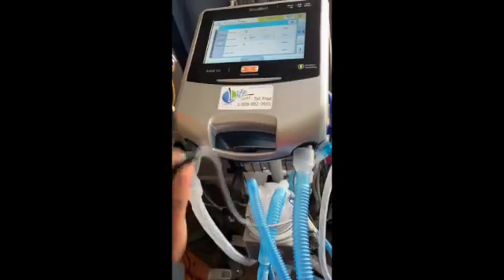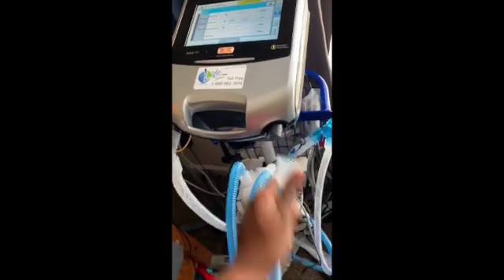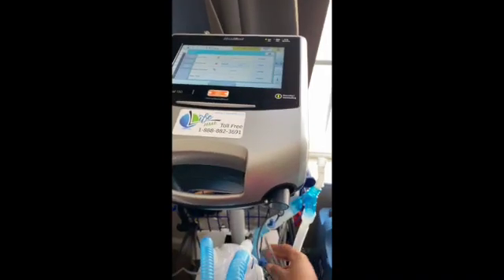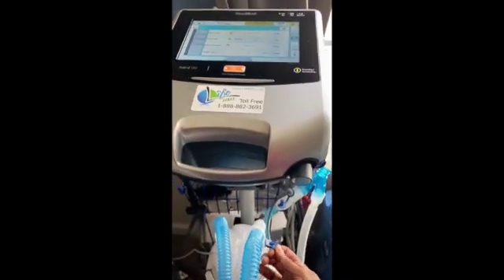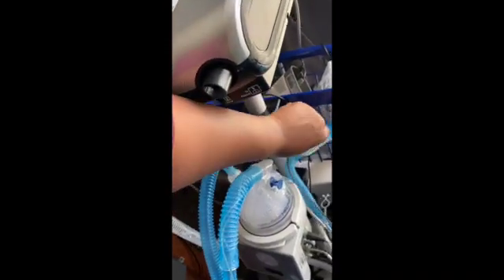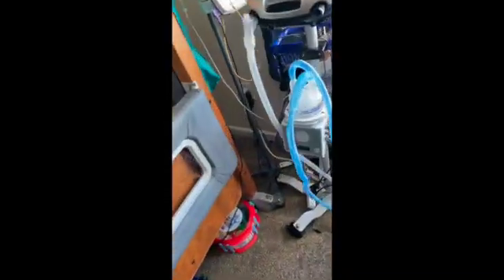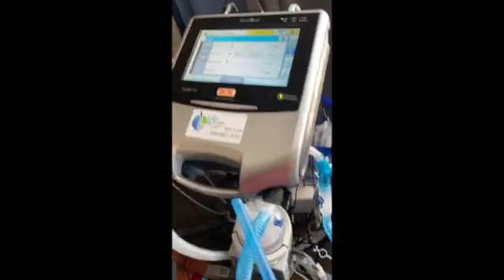What you want to do is make sure that everything is unplugged. Everything is unplugged — that's what you want to make sure of. These wires, these are the heater wires, and you want to make sure they are unplugged before you do the learned circuit on the vent.